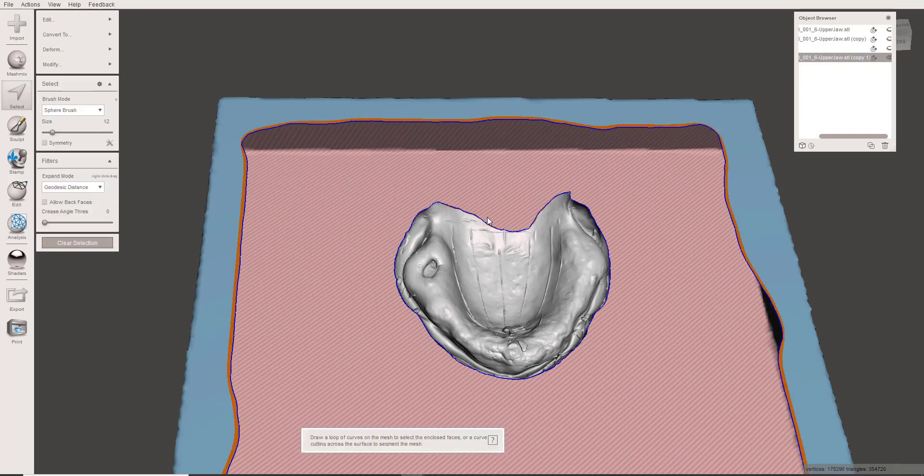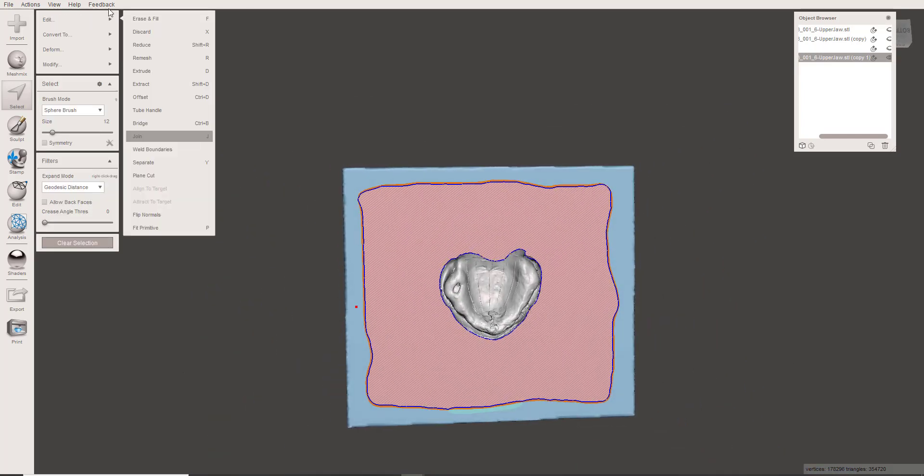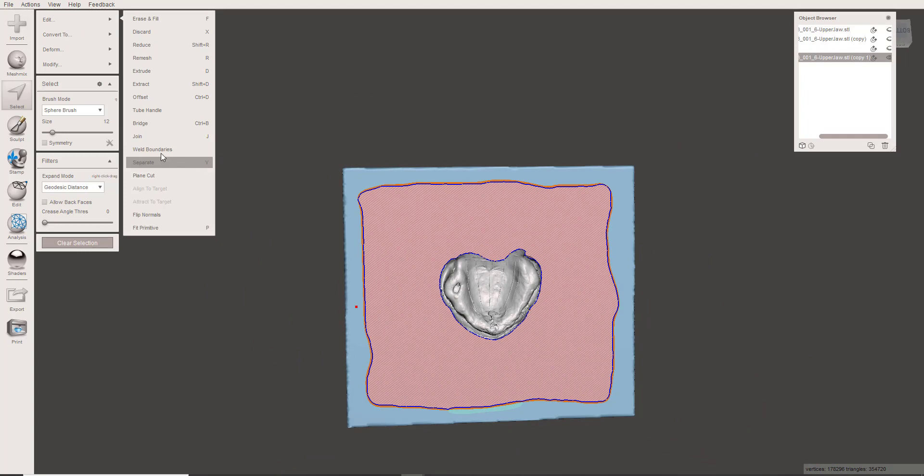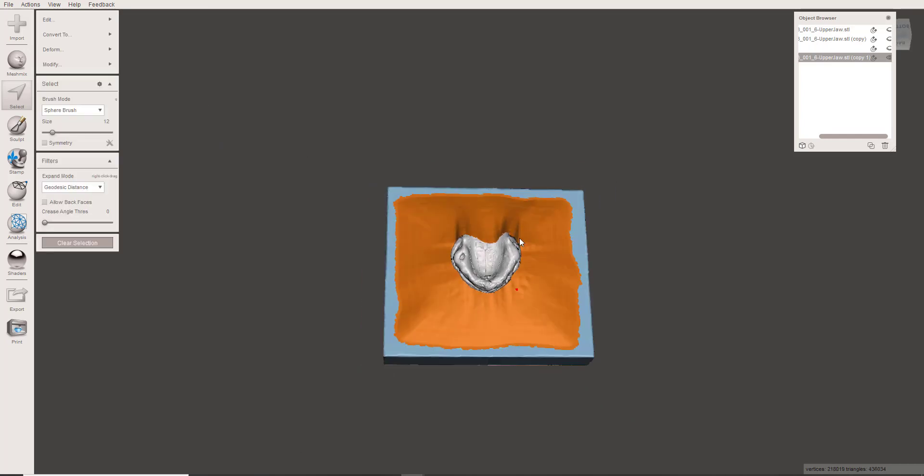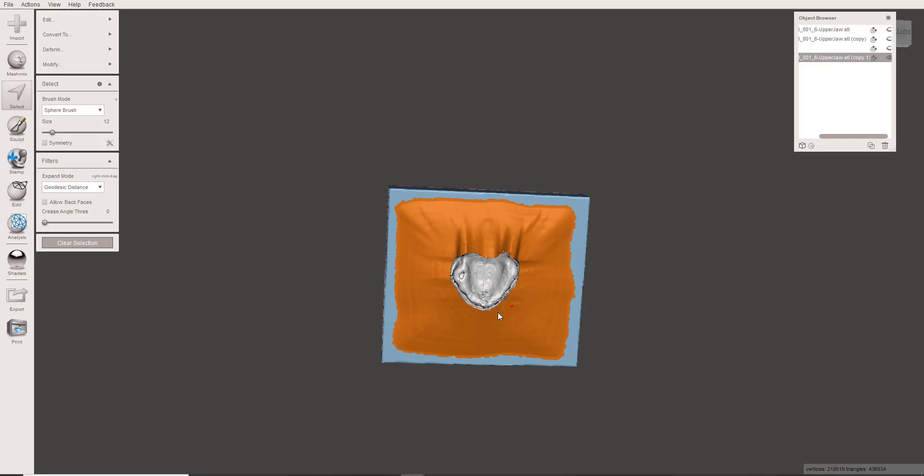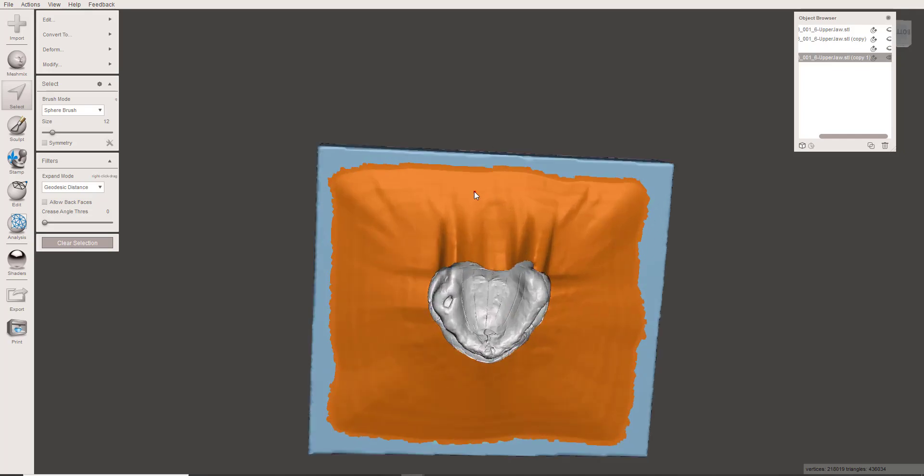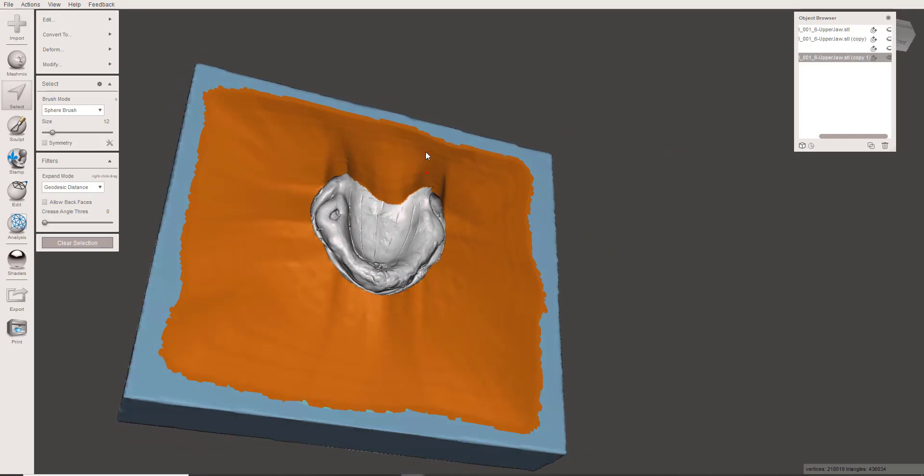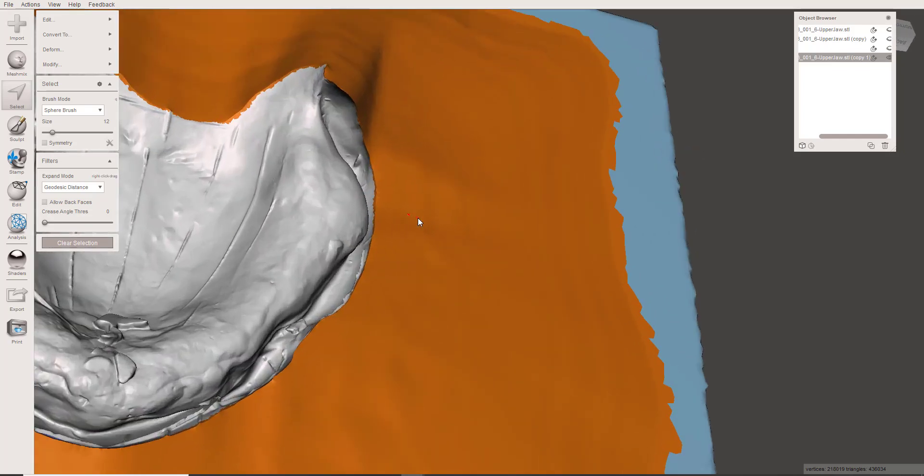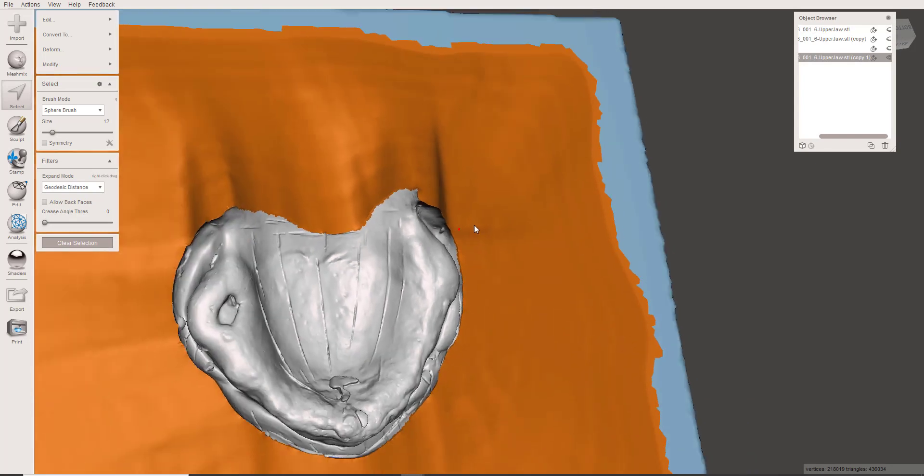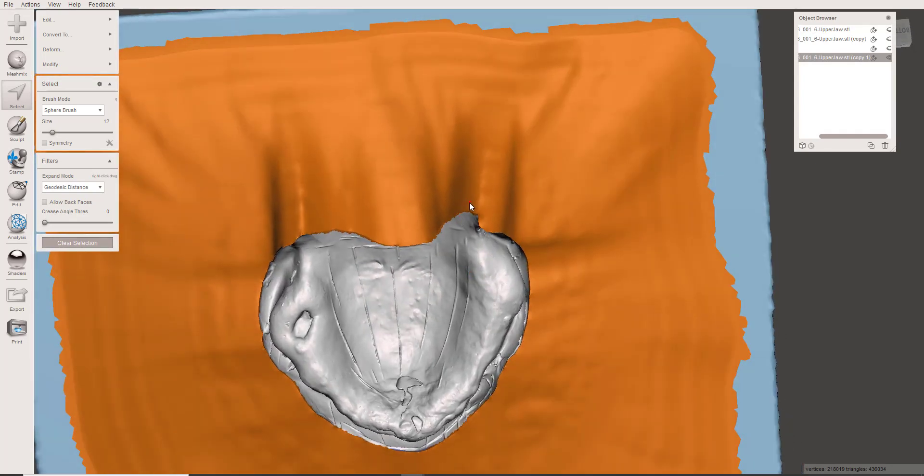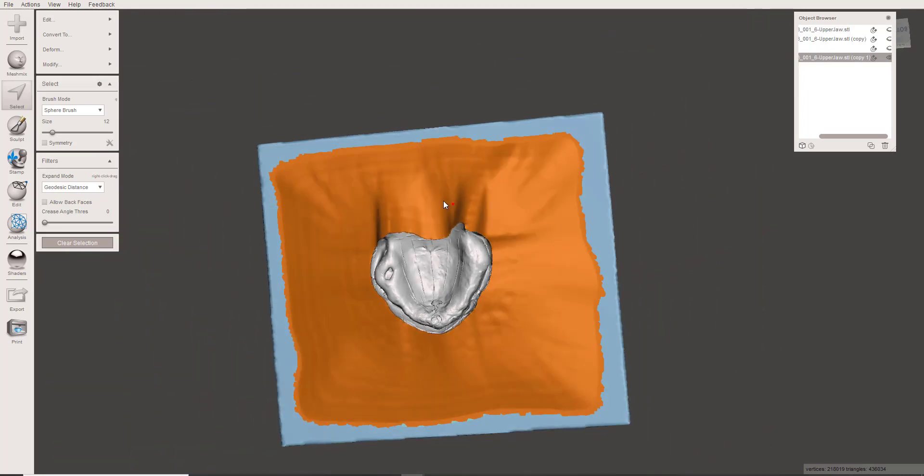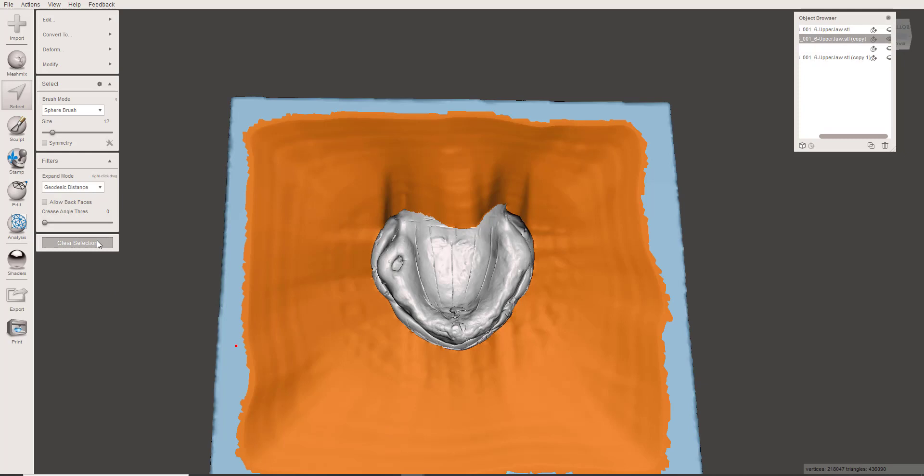So I've accepted that, and now this becomes very simple. Just come up to Edit, and let's join. You see the end result. You've just used the tabletop, and you've poured up a massive base with great land areas now. As you can see, there's no folds anywhere because what you do when you use that Join tool is that this edge of this mesh is going to come out and grab and join to the closest piece of mesh that it can reach.